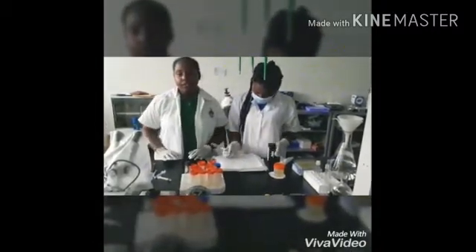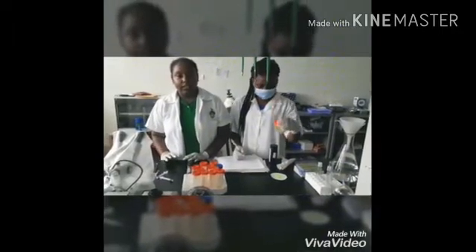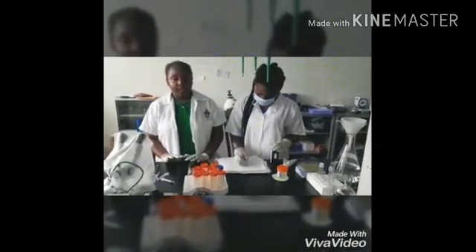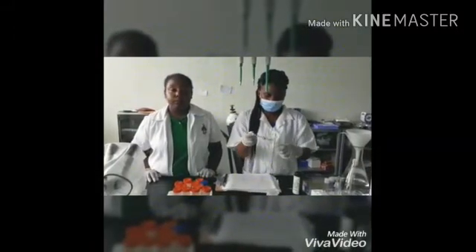Testing for sugar in urine relies on the interaction between sugar and glucose oxidase on the dipstick to form hydrogen peroxide, which results in a color change. Normal glucose is 0 to 0.8 millimoles per liter. The urine dipstick uses pluses to indicate the level of sugar in the urine at the time of the sample.